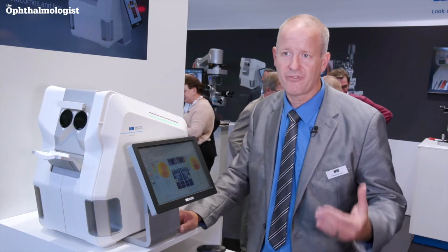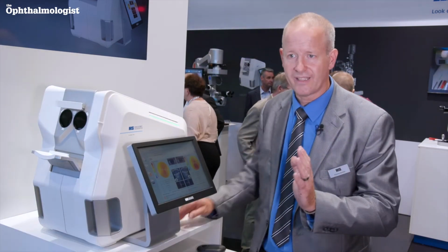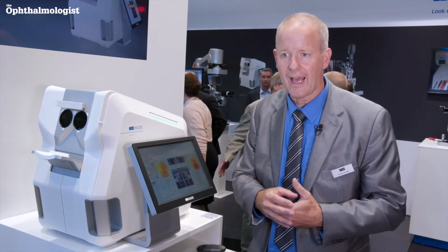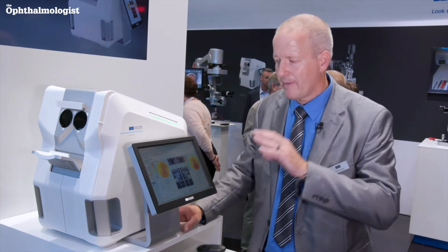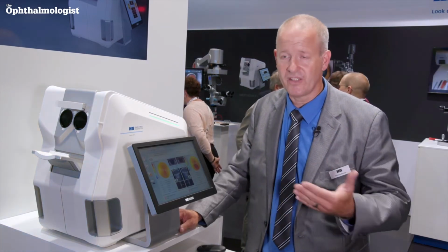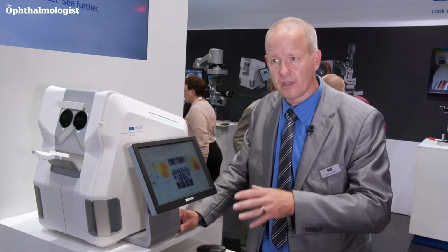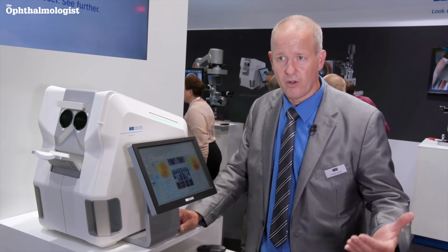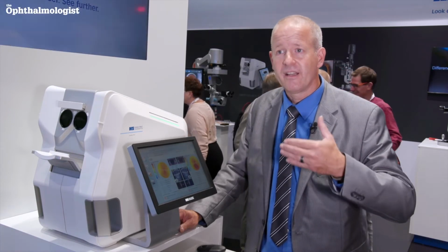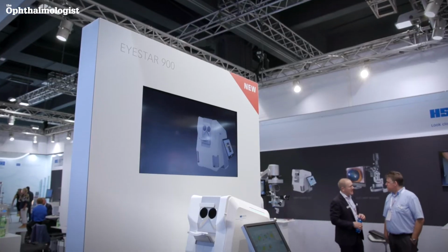So if you have a patient who is opting for a premium IOL, you can also look at this parameter if everything is okay or if he has got an unusual eye setup. The measurement can be done by everybody from the practice, so it's easy to delegate, and because you can network the device, you can then look at the data in your consultation room and then teach the patient what might be the best option for him or her.